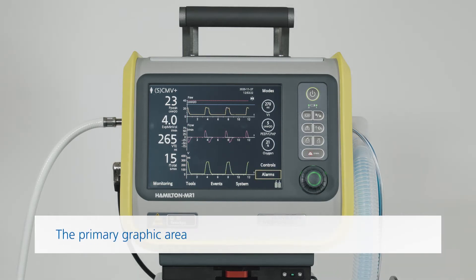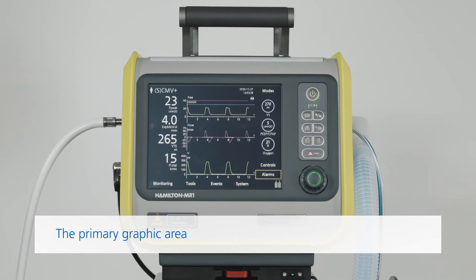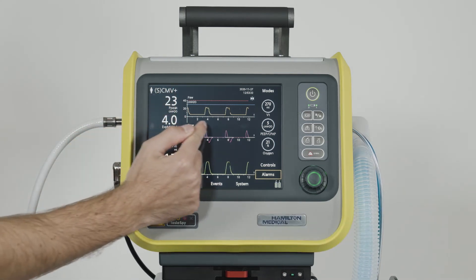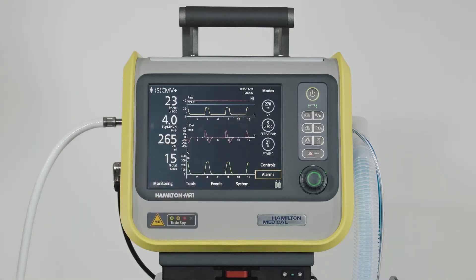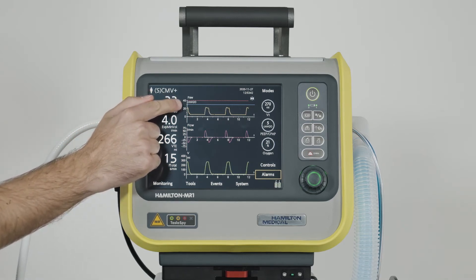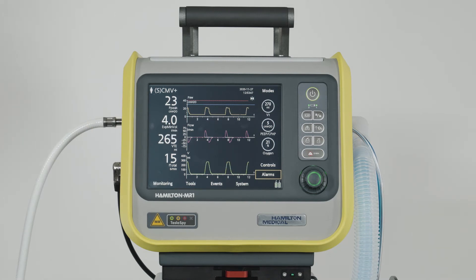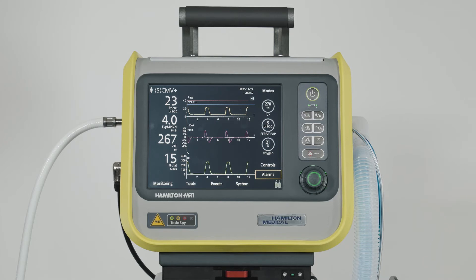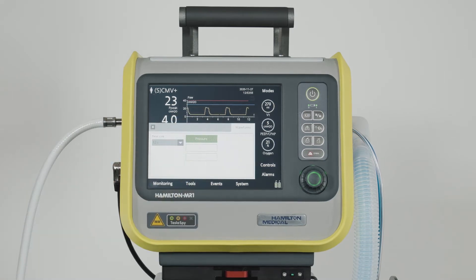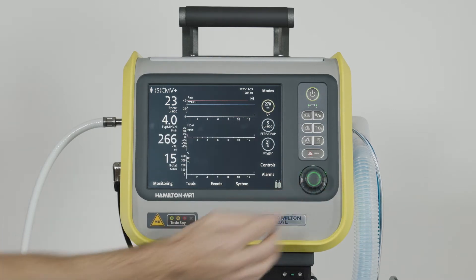The pressure-time waveform is always shown, which means you can't configure this area of the main display. This waveform plots pressure against time and also shows some additional information. The red line represents the high pressure alarm limit, while the blue one corresponds to the maximum safe pressure we can apply, or P limit — this is always 10 cm of water below the set high pressure alarm limit. You can change the time scale in the waveform window by touching the waveform and selecting the time scale you want to use.